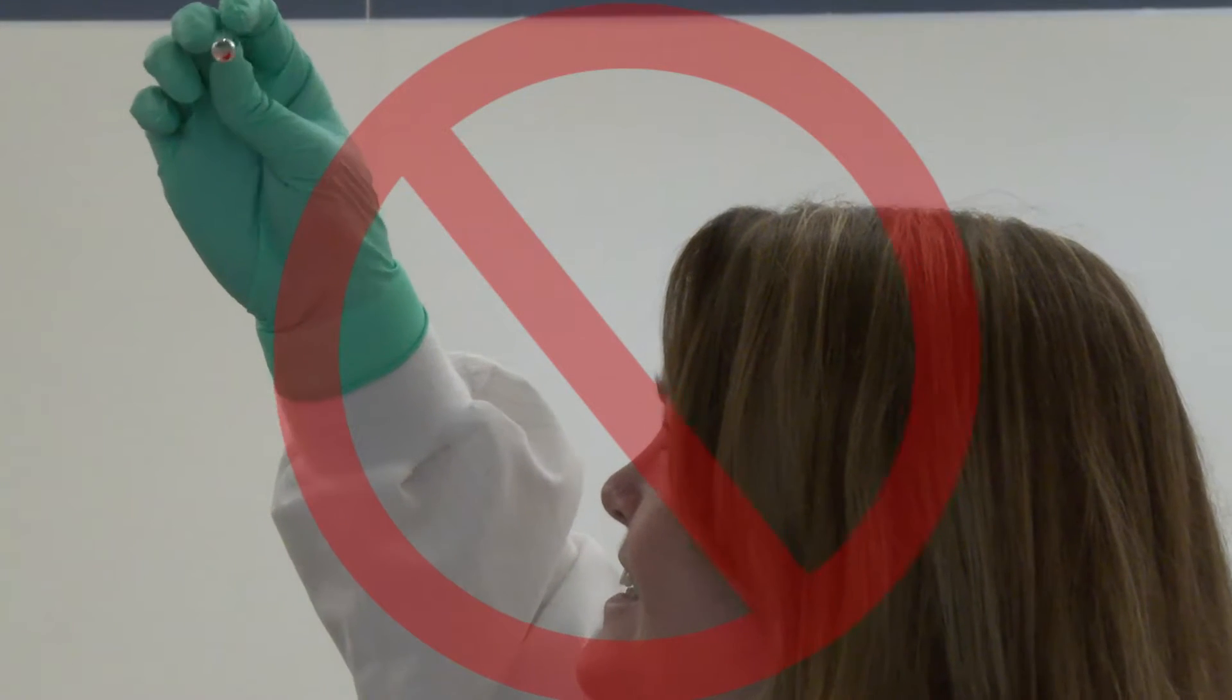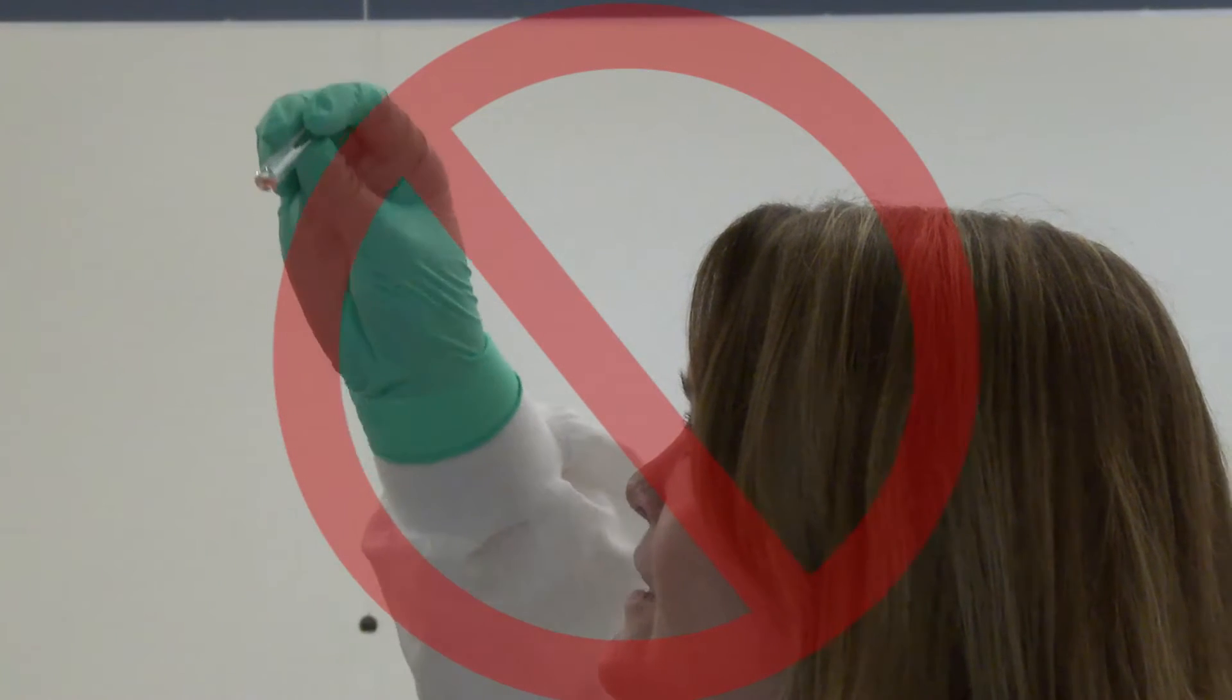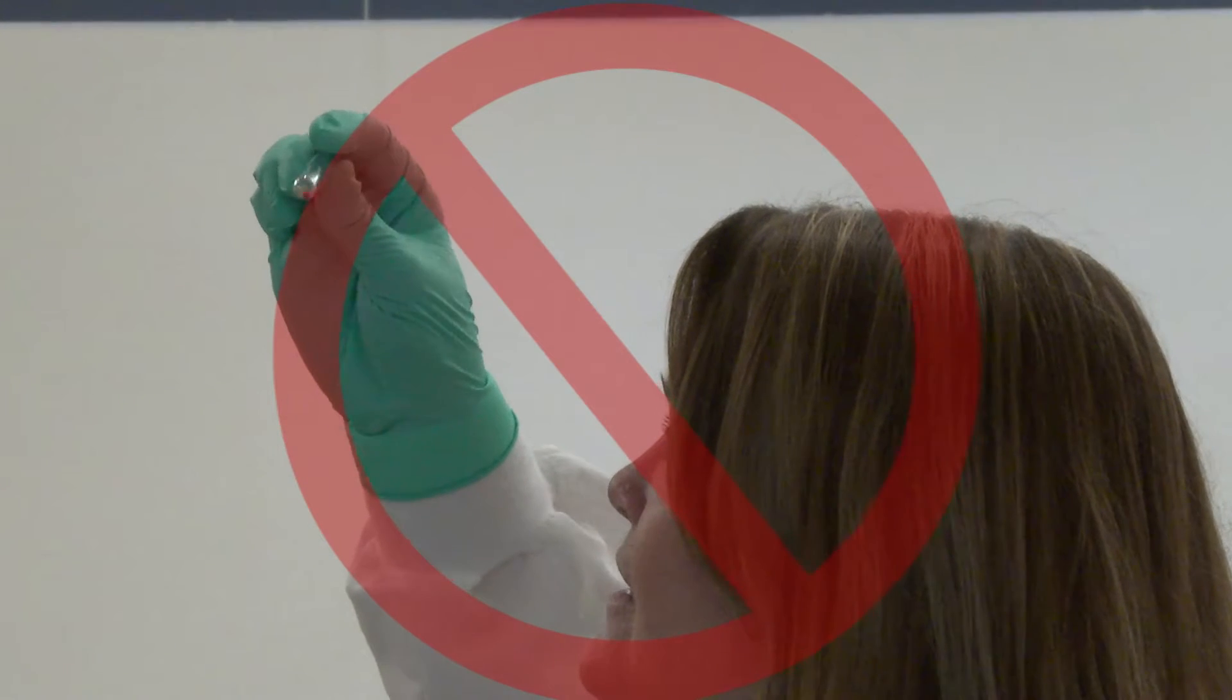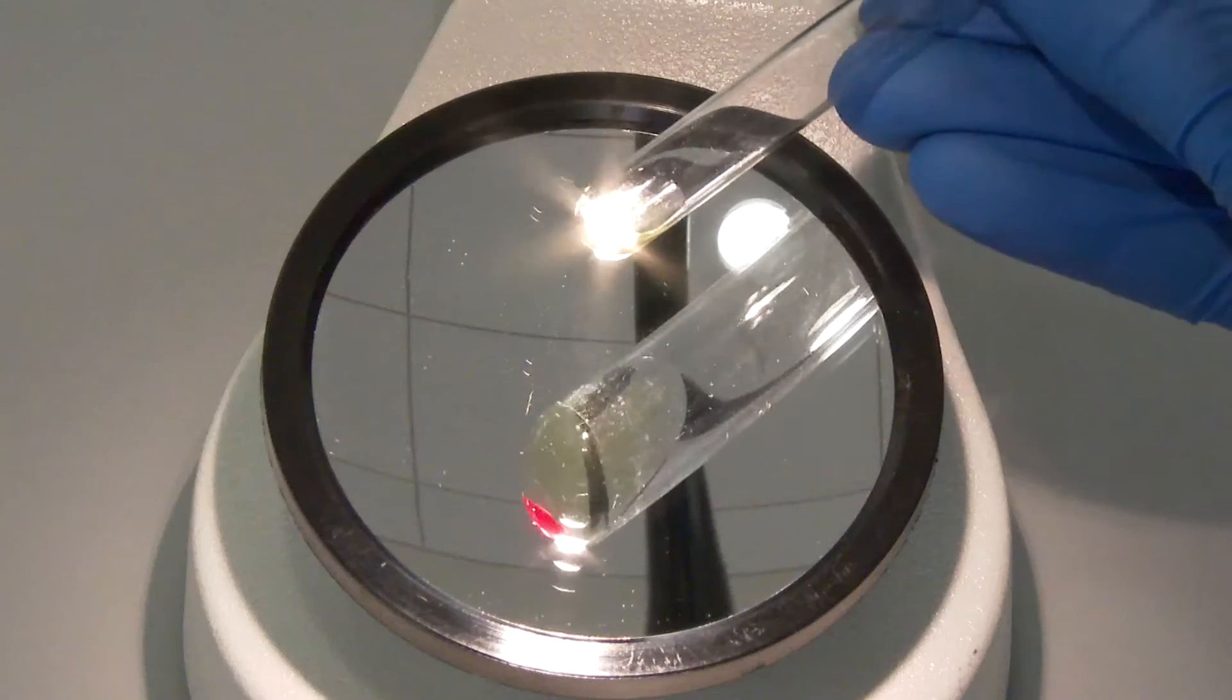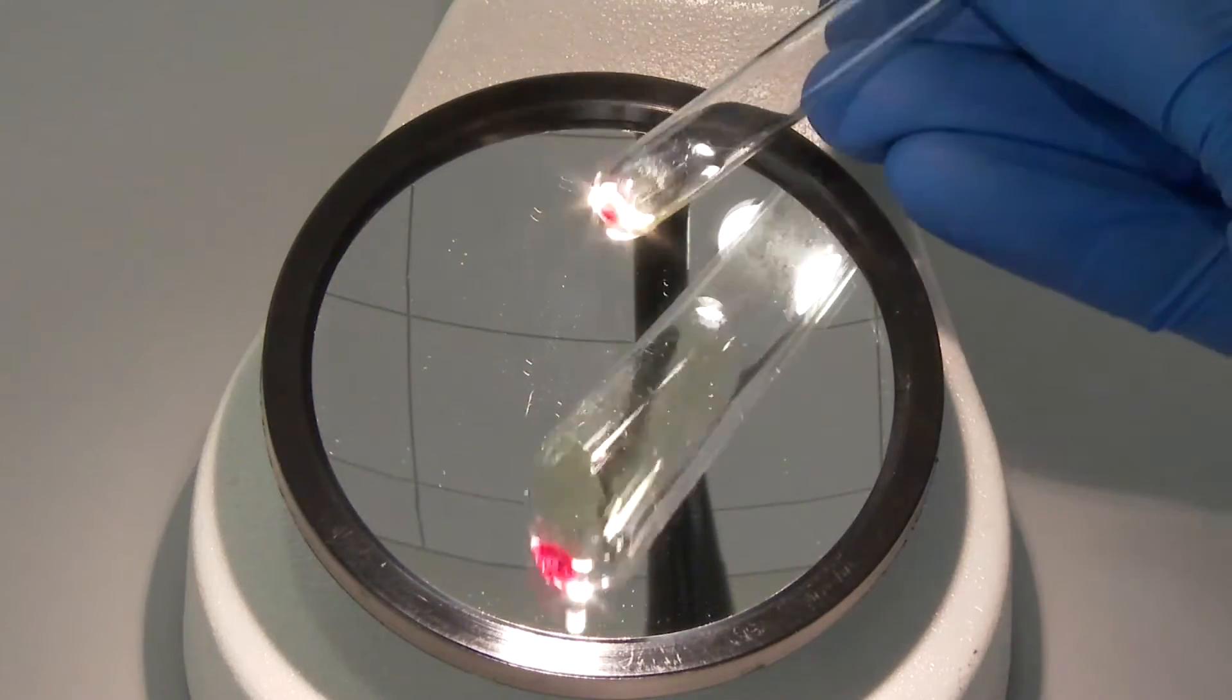Reading test tubes close to the face or above the head is not recommended because of the risk of dropping the tubes and specimen exposure to the eyes or mouth. The best way to view your tubes is using the light reader.